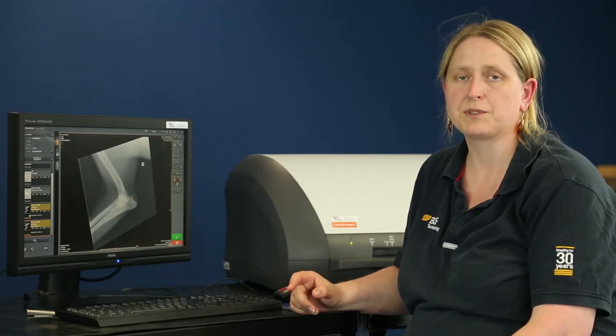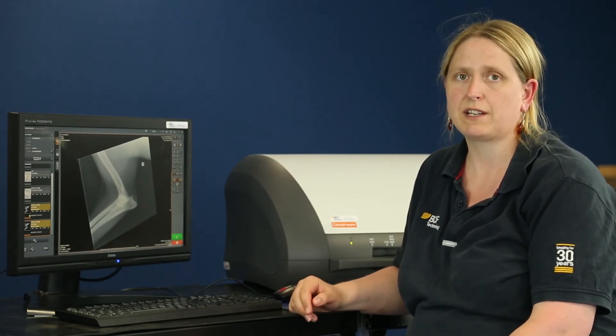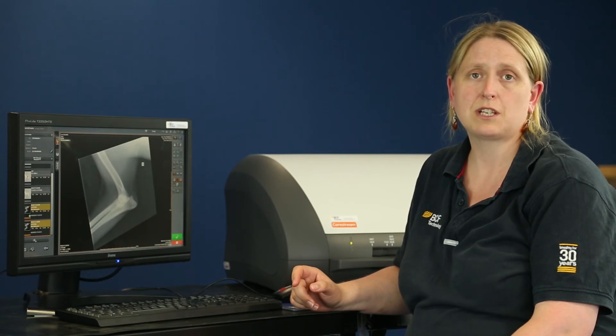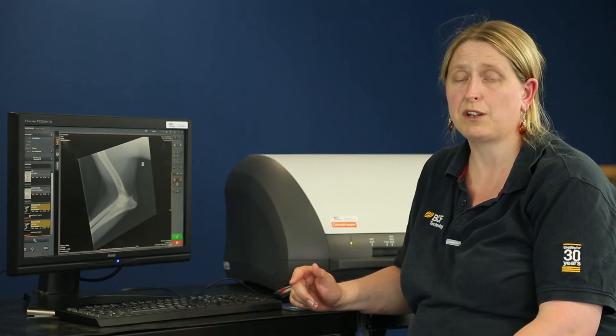One thing to remember with computerised radiography systems is that the plates themselves are quite sensitive to heat, background radiation, and scatter. So one thing you can do to improve your image quality is to routinely erase your plates. We normally suggest doing this at the beginning of the day if you've not used the machine for a few days, or in summer if it's exceptionally hot it may be worth doing this each morning.